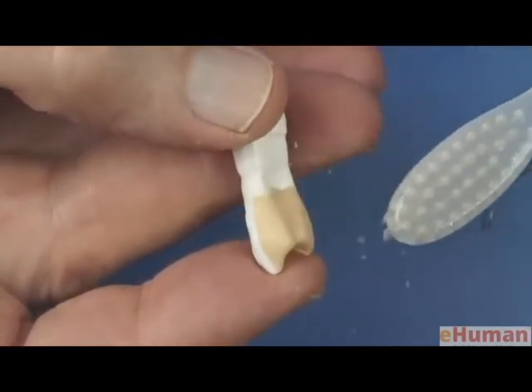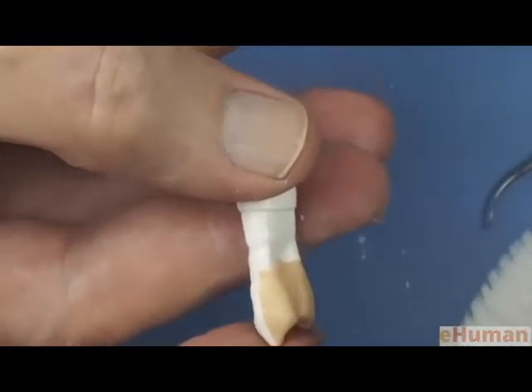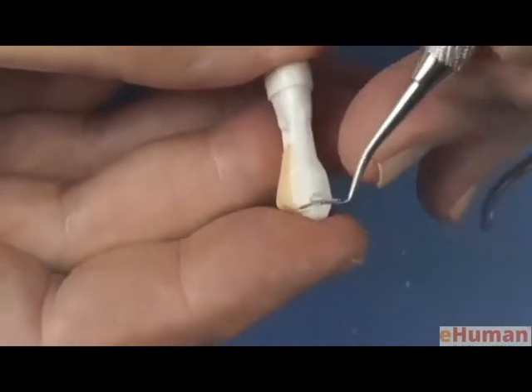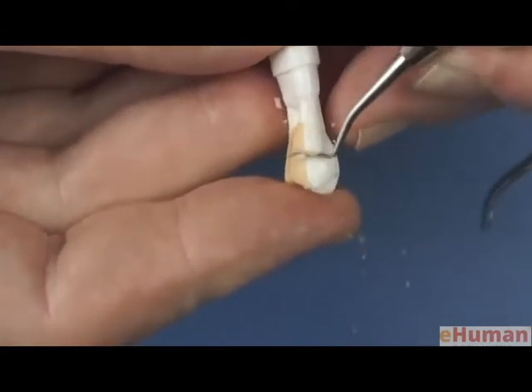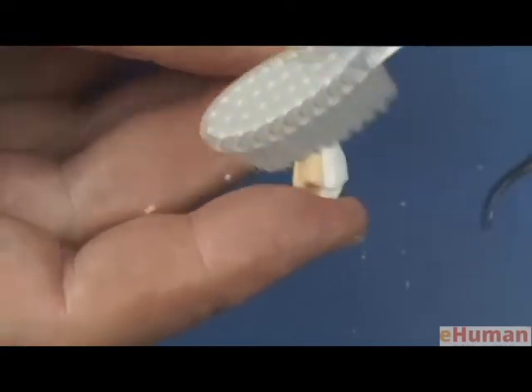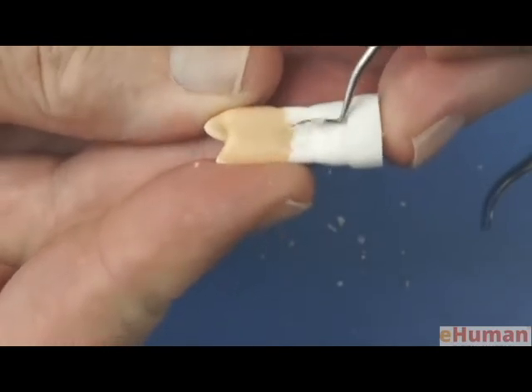And this is a very soft bristle brush. The best one I know of is actually called a Nimbus brush, and not that I'm selling Nimbus brushes, but it's a very nice fine bristle brush for removing the wax. Go to the lingual surface, carve that wax away. Now let's go to the proximal surface and get rid of the wax there.